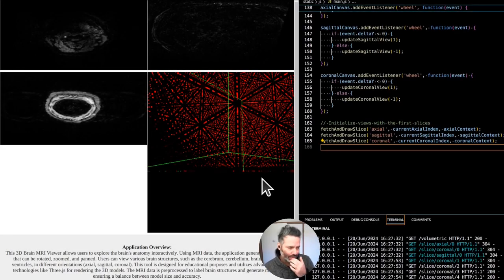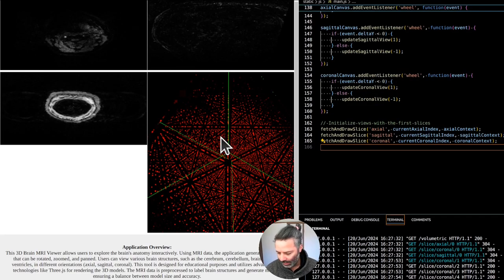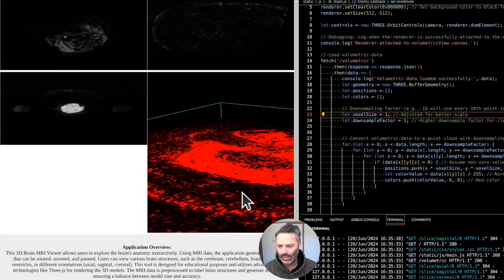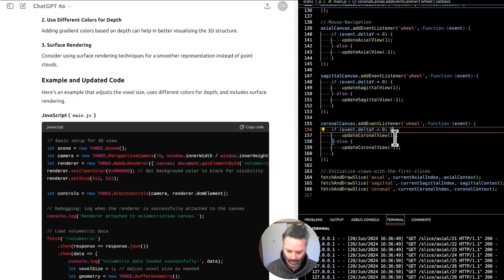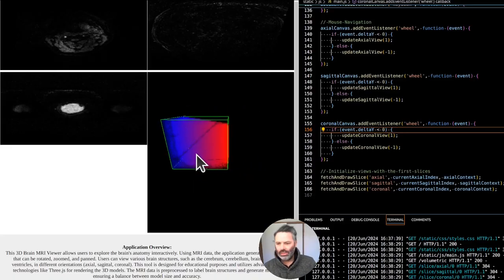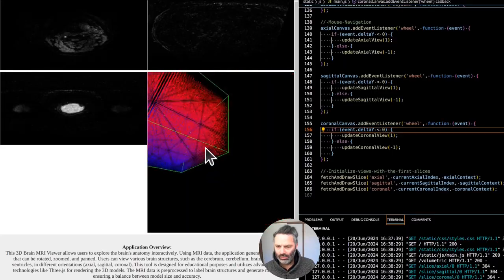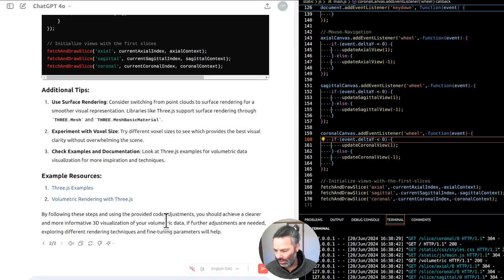I totally didn't expect it to look like this. Can you find other examples of similar displays and explain what might be happening? Yeah this is interesting — I can see some features of the brain, but it obviously needs to be improved quite a bit. Looks like there are many voxels in there. Playing with parameters, you can get to a point where you see some brain structure in the fourth canvas — the volumetric data — but it still looks pretty weird.